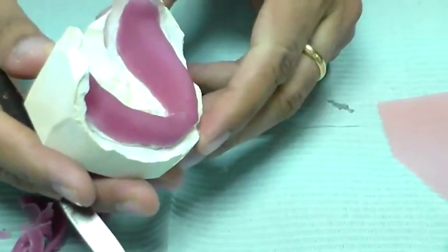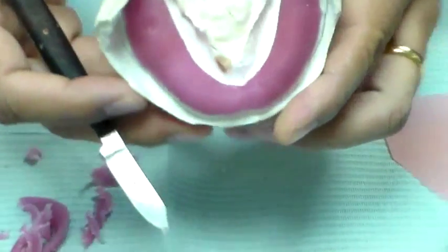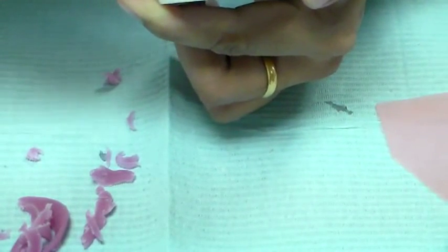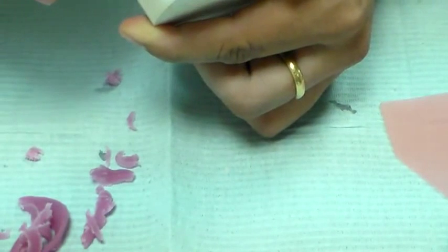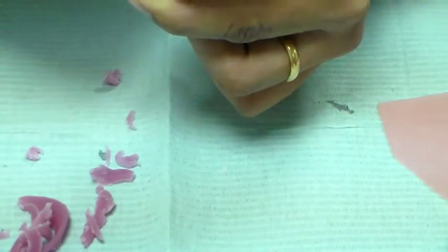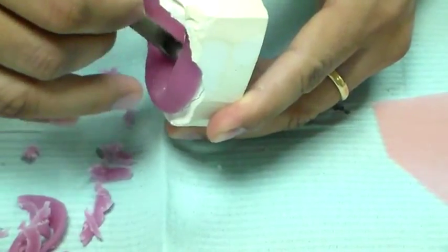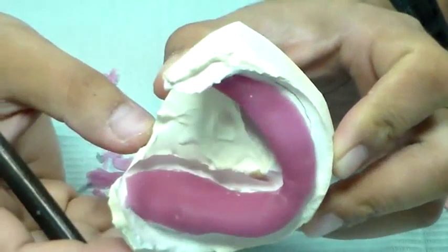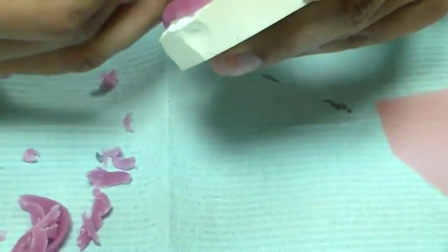You can see it has come to the green line level. Here also on this side I'm going to remove the material. So I have material there, and here it is — at the green line level. It is even on this side, all at the green line level. Now having done this, there are a few more things we need to make — the handle and some small adjustments.